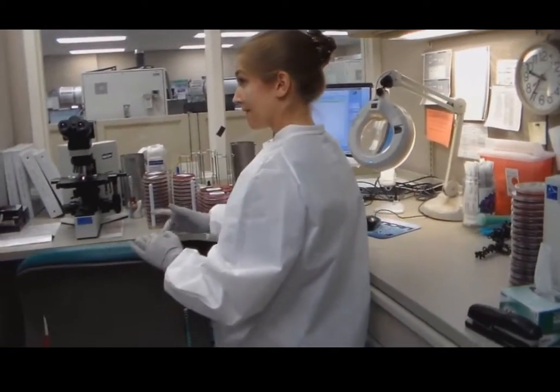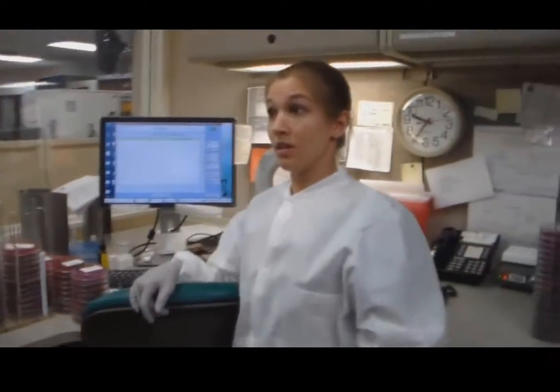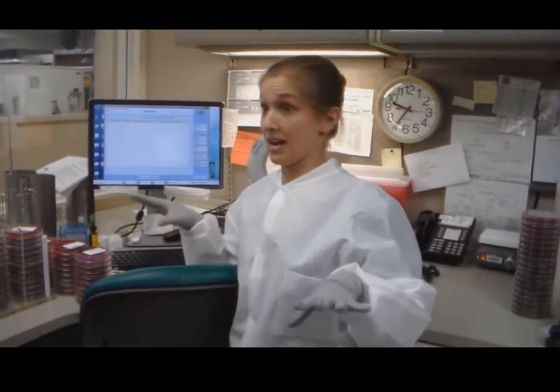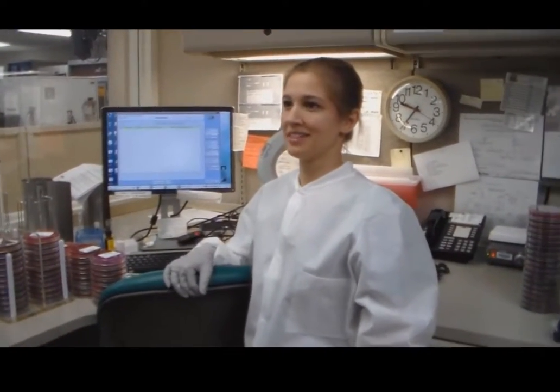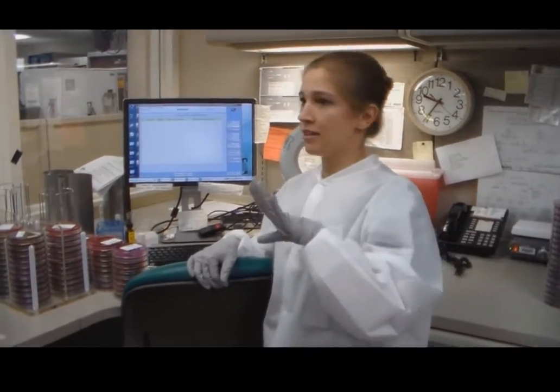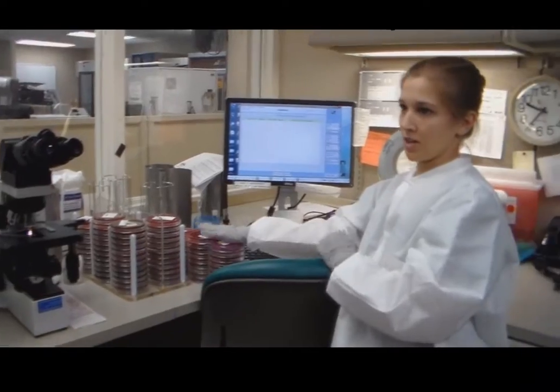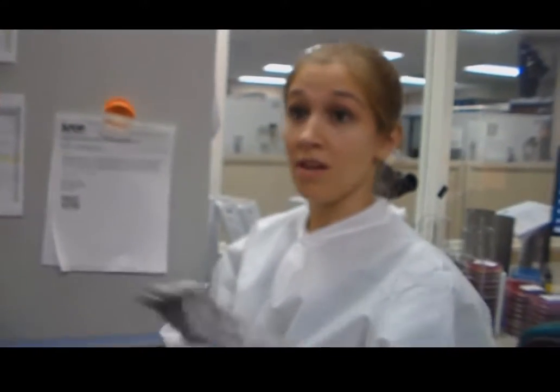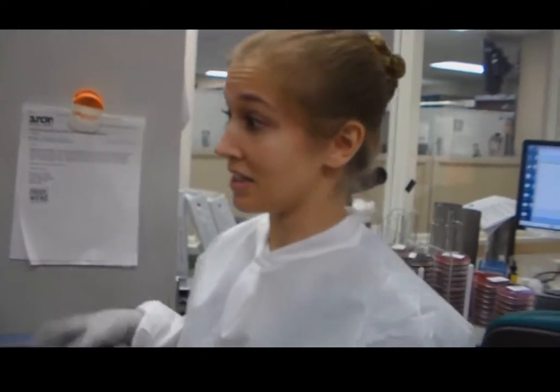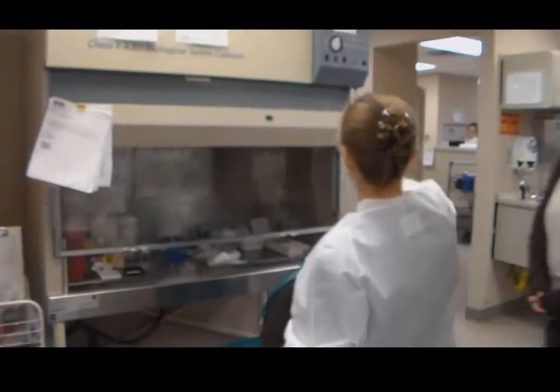I see all your samples and stuff. How long do you spend in this lab, like every day? Every day is 8 hours. So every single day? There's no day off. 365 days, 7 days a week. I read plates on here for day shift. Cultures come in to our lab 24/7, every day, constantly. Whoever's here will come see this, and we can show you.